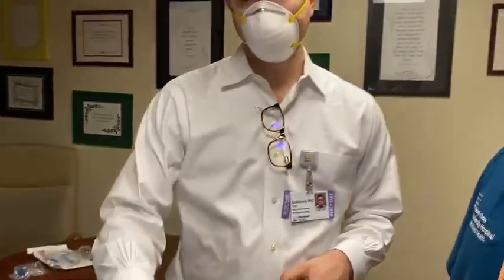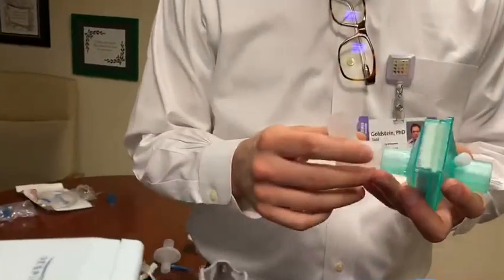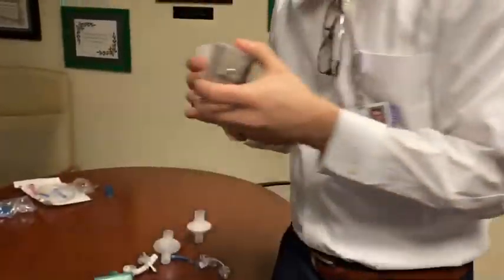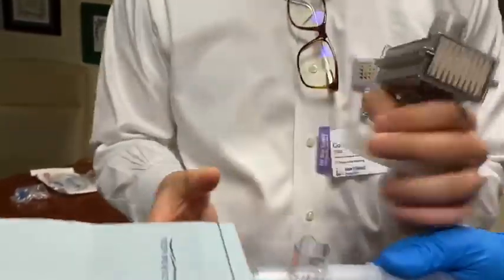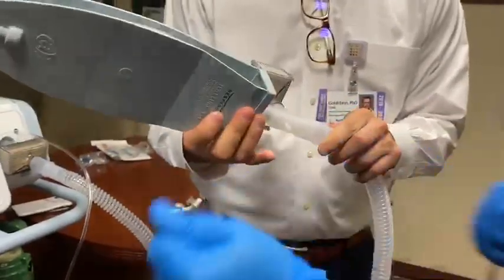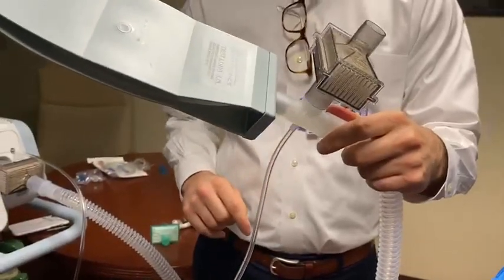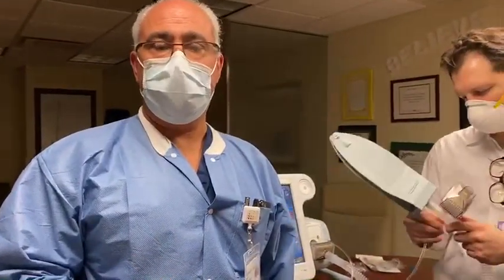If this piece is unavailable in stock, we have ways that we can 3D print a replica and make it available to you, where you would then, instead of using the proprietary piece, be able to slot out the normal circuit and hook up the 3D printed piece, which would then sufficiently work to support. You can also connect another HEPA filter here if you need to. If any of you have any questions, we will give you contact information at the bottom of the video. Thank you very much.